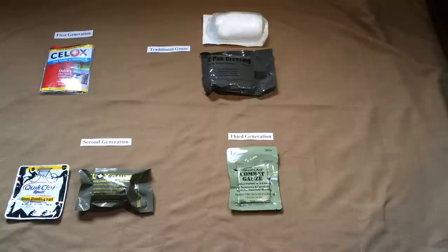None of these you're going to leave in the wound bed for an extended period of time. The purpose is to control bleeding, then the dressing should be removed and the wound properly treated — whether the wound will be closed or allowed to heal by second intention, healing from the inside out. These are not meant to be left in the wound for extended periods; we're talking hours versus days. It's really important to read the product information sheet — gauze may look straightforward, but there is a lot of specific information and it has to be used properly.